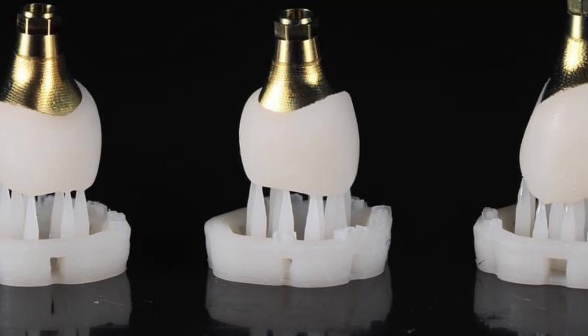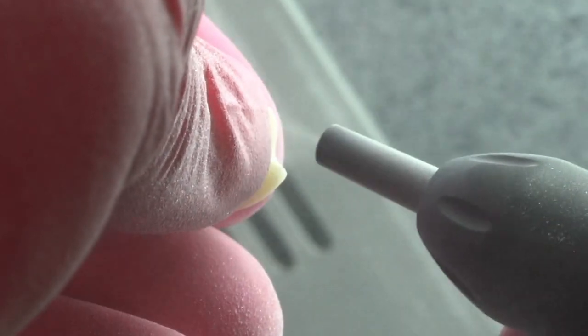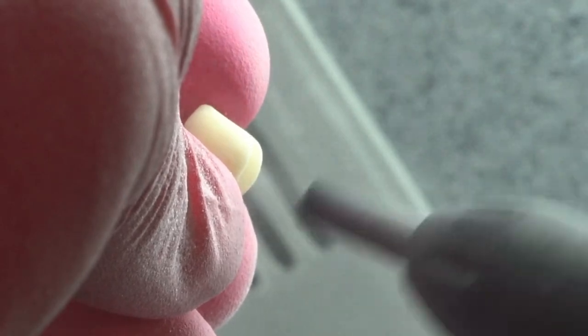How we're actually going to do this. The first and most important step is microabrasion. You want to make sure that you're using about two bars of pressure 10 millimeters away for about 10 seconds.